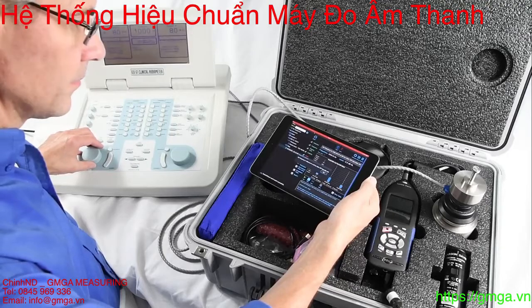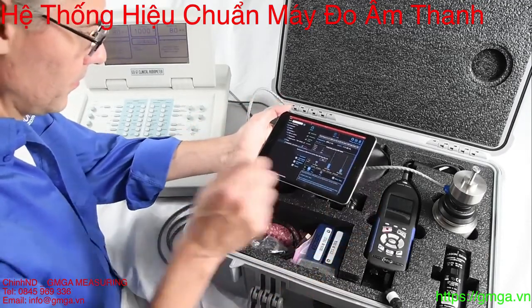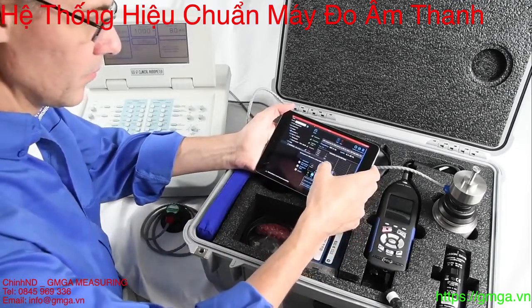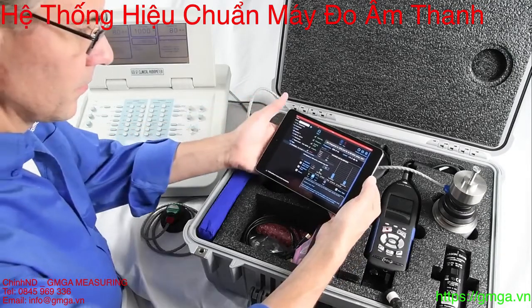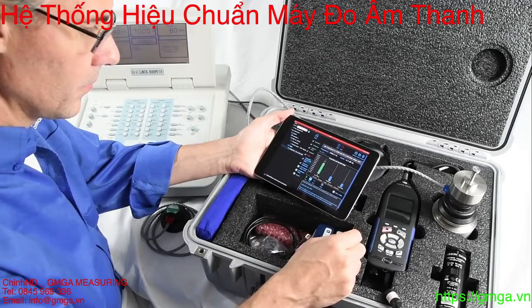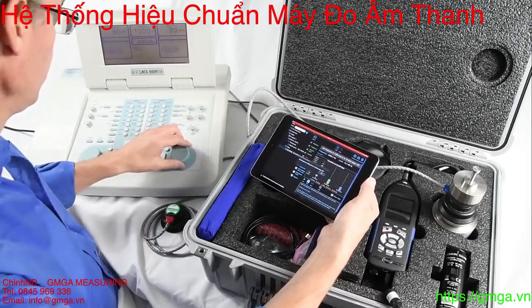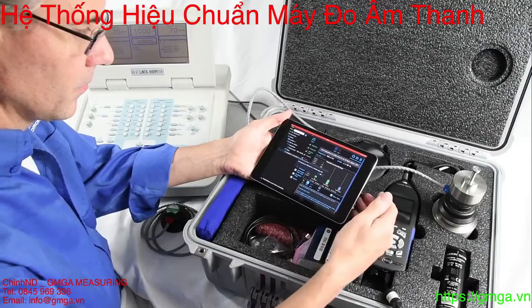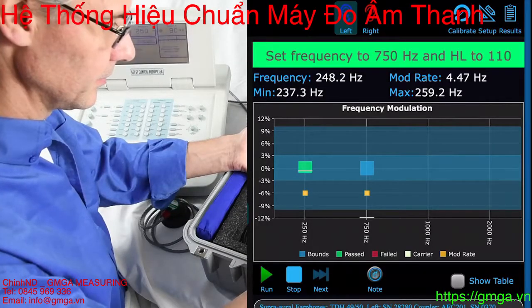When doing crosstalk, you will start with the left transducer in place. Ensure the right side is away from the signal and coupler. Adjust your audiometer accordingly and select OK. The next part is to switch the signal to the right side, keeping the equipment as is. Then select OK. Turn both sides off for the final step. When you do the right side later, you only need to do the first step, and then you could press Stop.